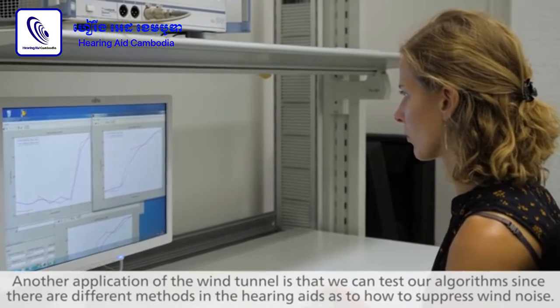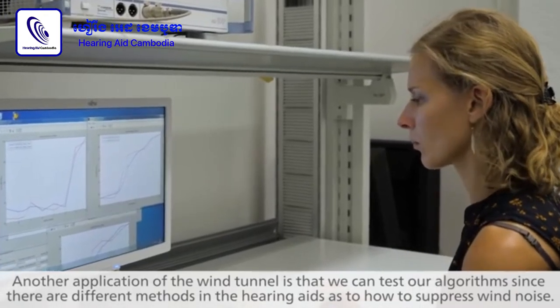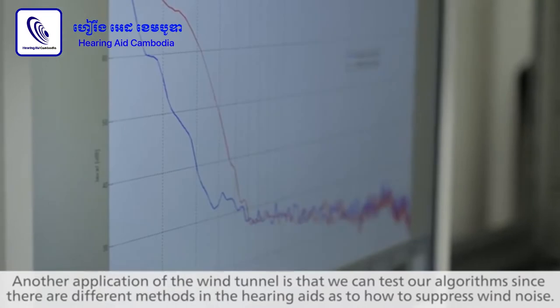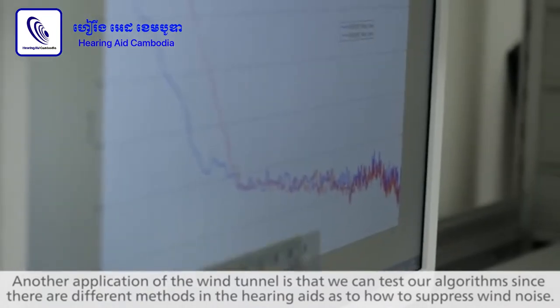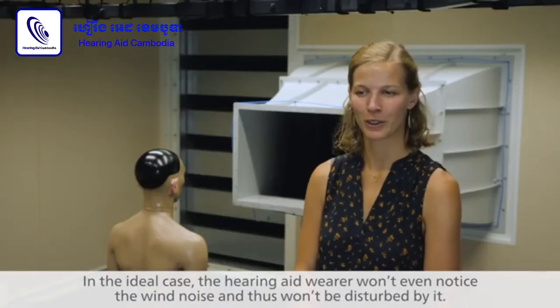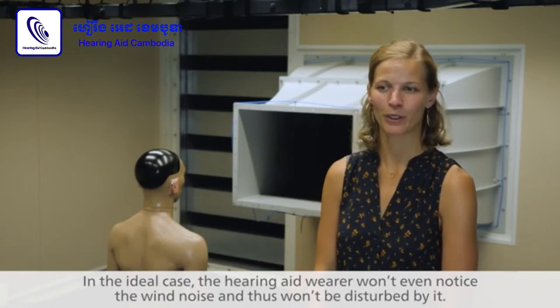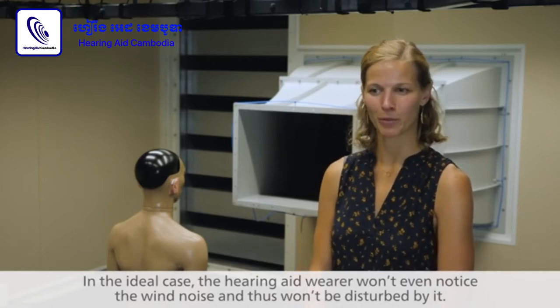Another application of the wind tunnel is that we can test our algorithms, since there are different methods in the hearing aids as to how to suppress wind noise. In the ideal case, the hearing aid wearer won't even notice the wind noise and thus won't be disturbed by it.